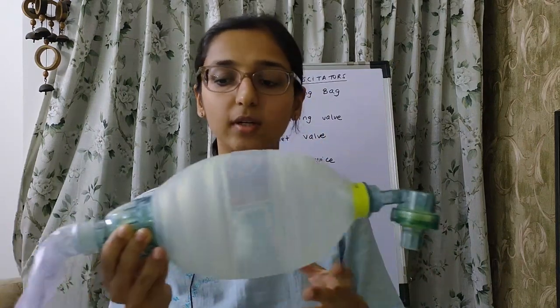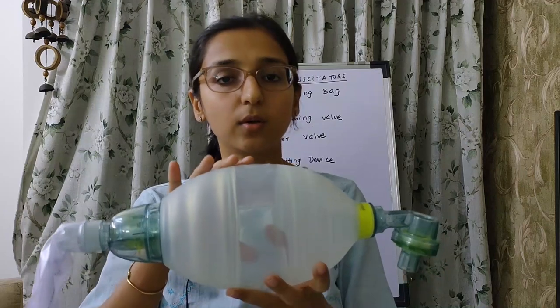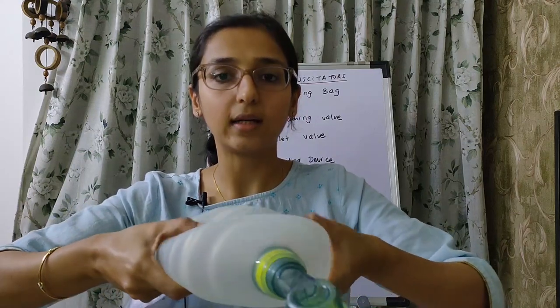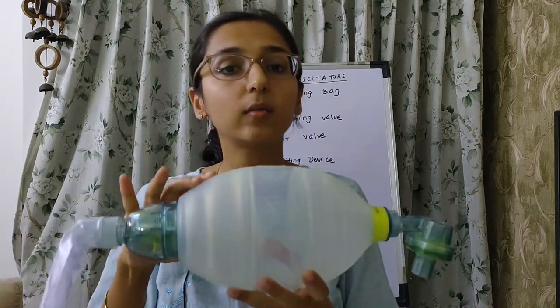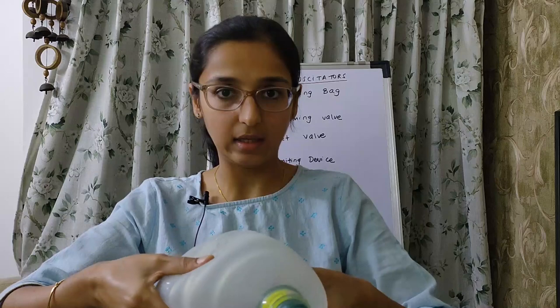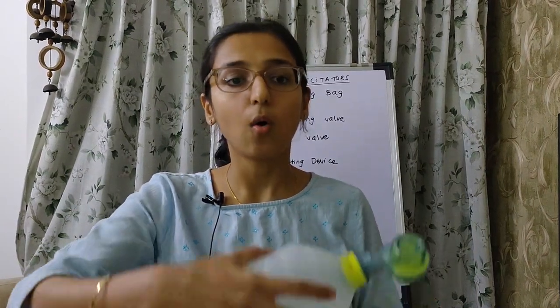This bag has got two ends — one is the patient end and the other is for the respirable gas inlet. You can manually ventilate the patient by the one-hand technique or by the two-hand technique. The amount of tidal volume going to the patient will be determined by which technique you use. If you want to improve the tidal volume, use the two-hand technique. You can also ventilate by holding the bag against your body or against a surface.